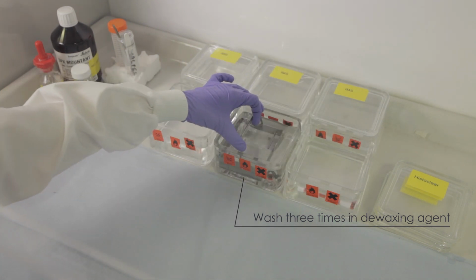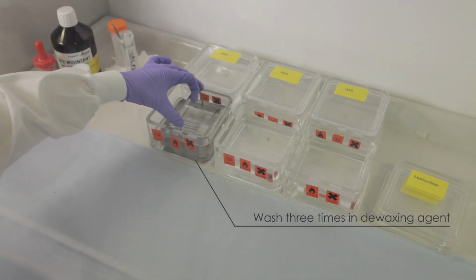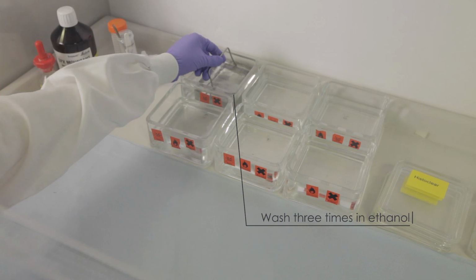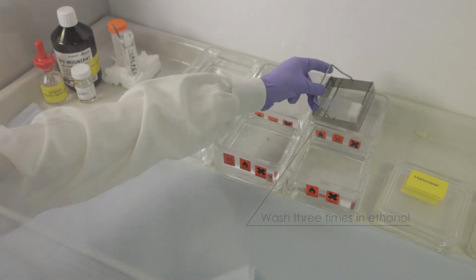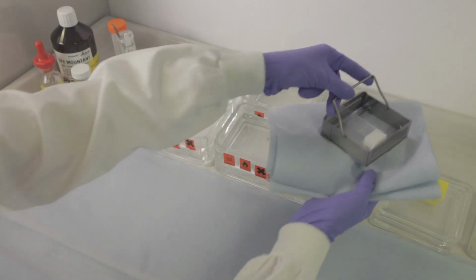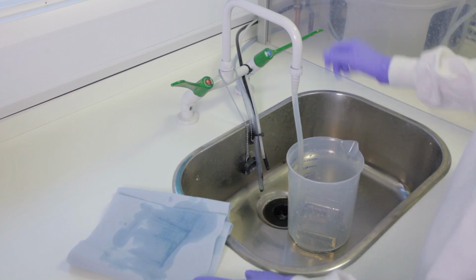The slides are gently agitated in a dish containing dewaxing agent, and then moved through dishes containing decreasing concentrations of ethanol. After dewaxing, the slides are rinsed in tap water to remove any remaining alcohol.